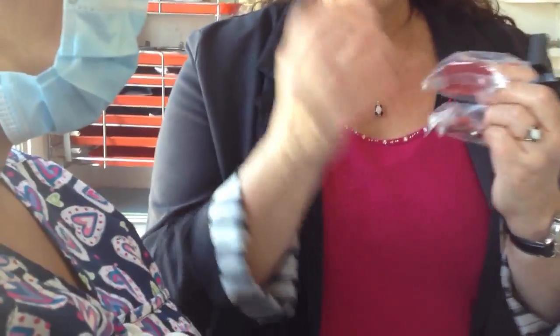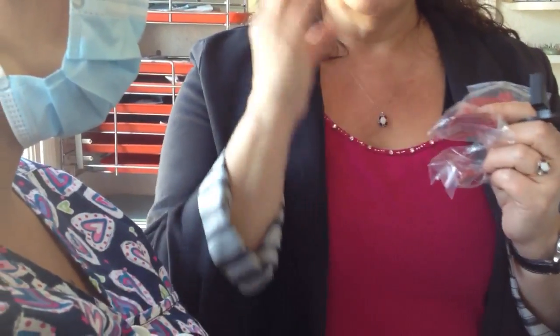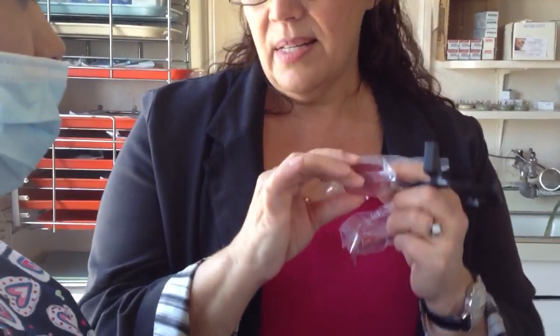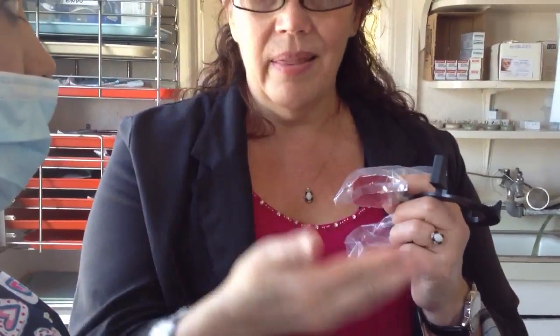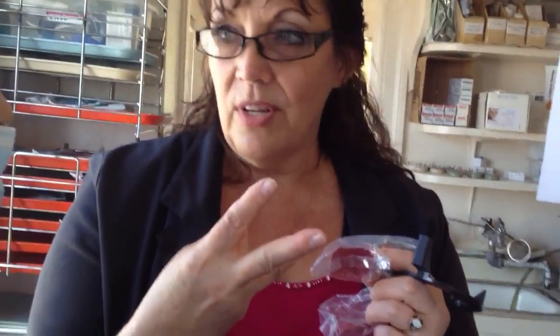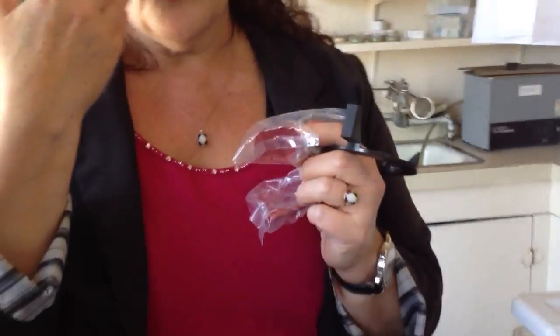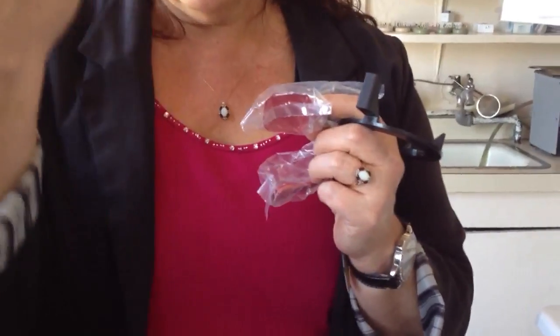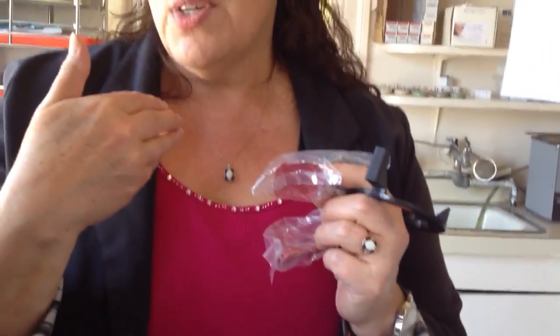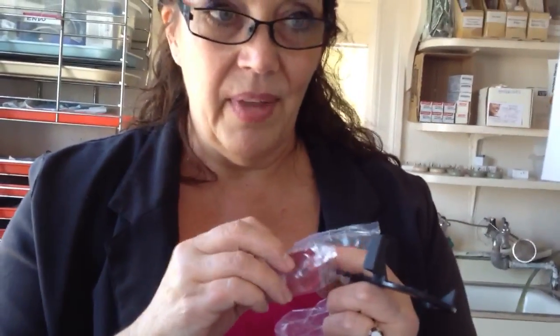So with a large person that has wisdom teeth, hard to get distal of the molar and then the next shot to get that distal of the cuspid in two shots. So that's where the vertical bite wings, they're actually three shots per side. So you get one, two, three. And then verticals, you get more of the bone.